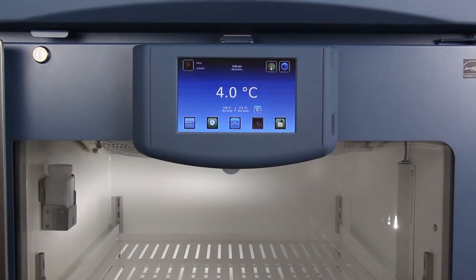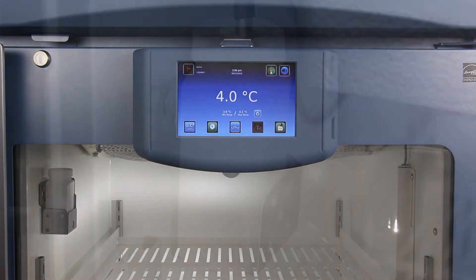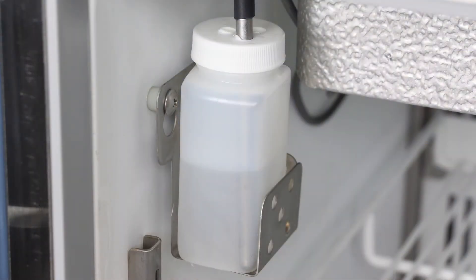This video of the IC3 Information Center demonstrates the Automatic Alarm Test feature. The Automatic Alarm Test utilizes Peltier self-test probes. This technology heats the probe for a high alarm activation and cools it for a low alarm activation.